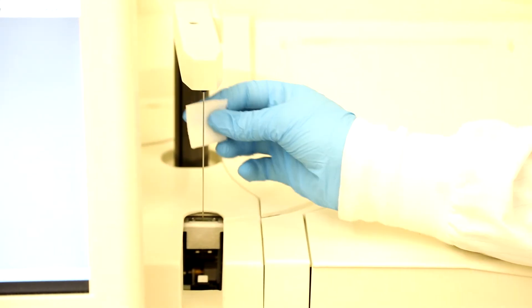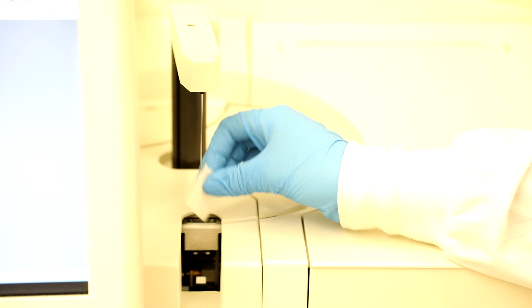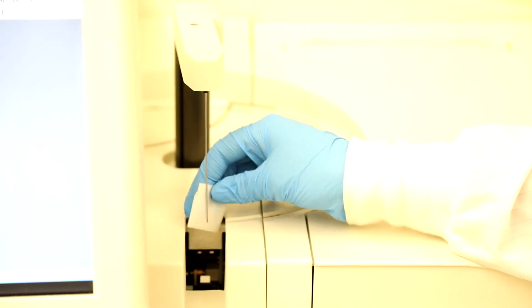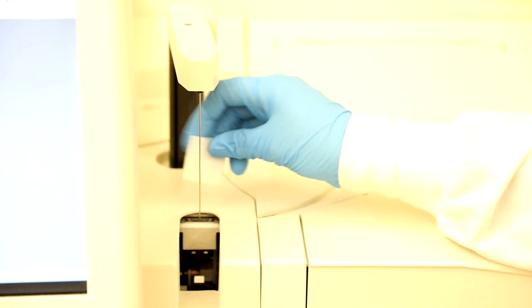Next, grip the arm of the probe to move it above the sample hole. Use an alcohol wipe to gently clean the probe.